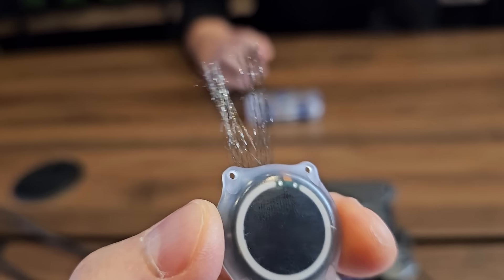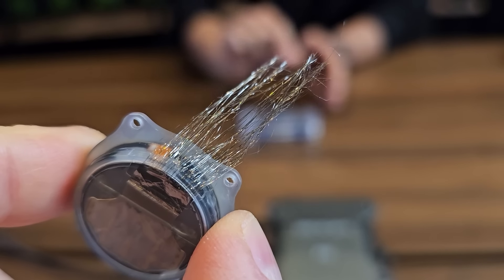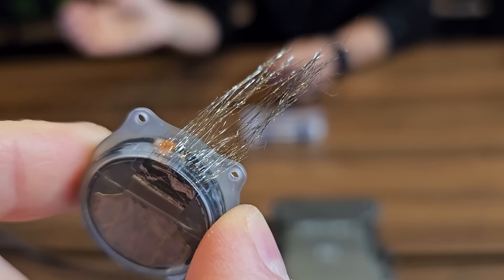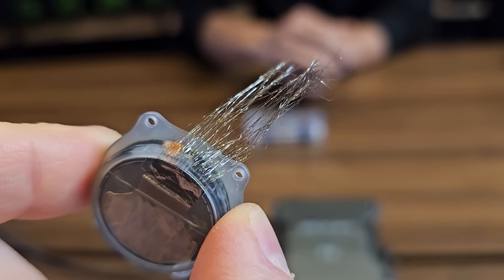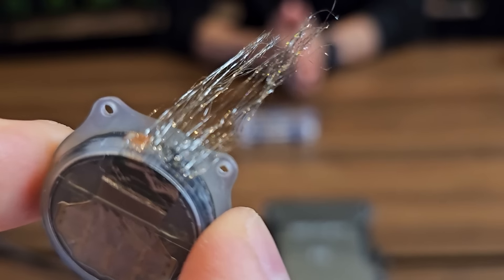This is way smaller than I realized. The threads themselves are quite strong. And they also have a very interesting feature at the end called the loop — that's the mechanism by which the robot is able to interface and manipulate this tiny hair-like structure. The width of a thread starts from 16 microns and then tapers out to about 84 microns. The average human hair is about 80 to 100 microns in width.